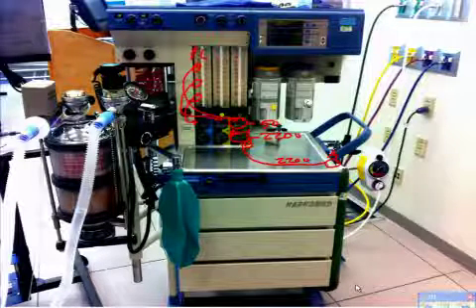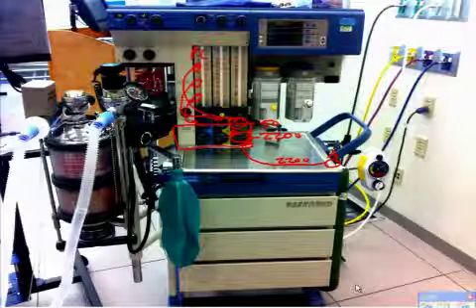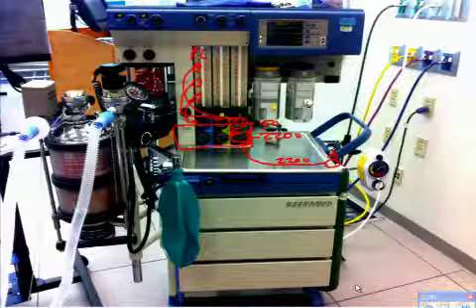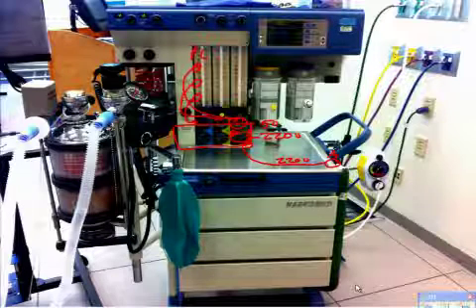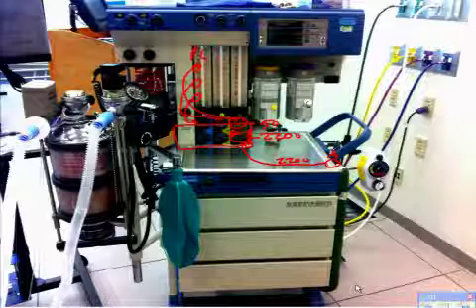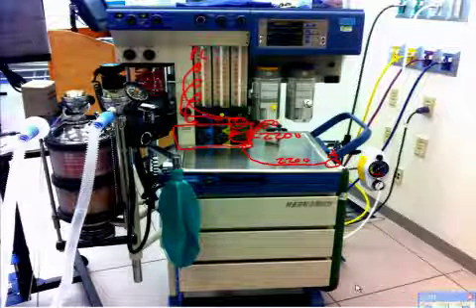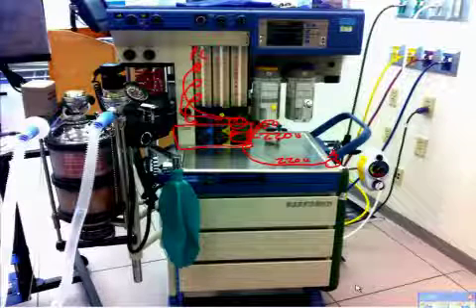So it's going to actually lie, if you look at this as a box, this box is this wide. So you have plenty of room behind the machine. Okay? So you're going to have tubes that run out kind of like that. Then you're going to have a valve behind that that reduces the pressure. Okay? So that's done right here.